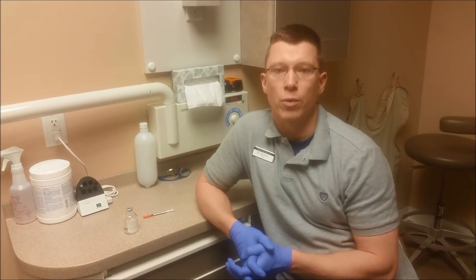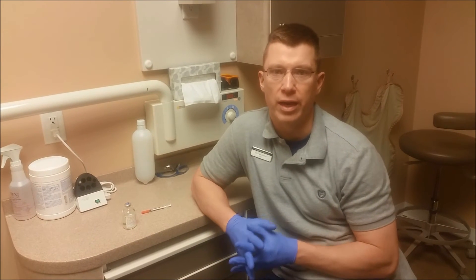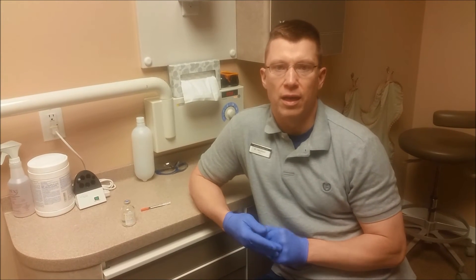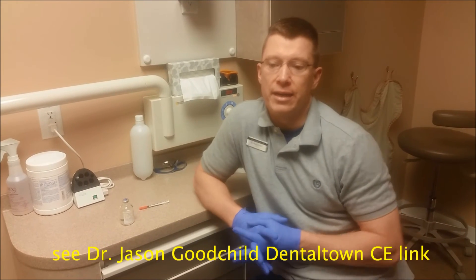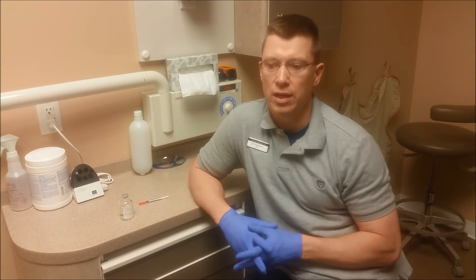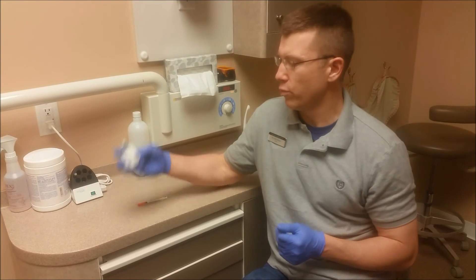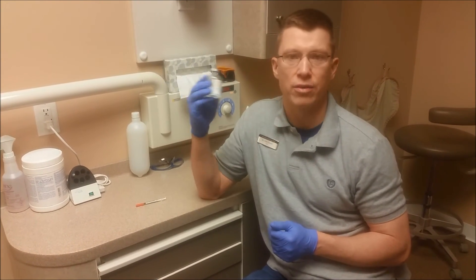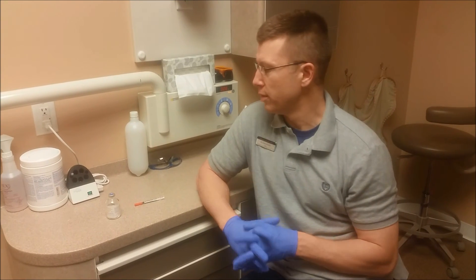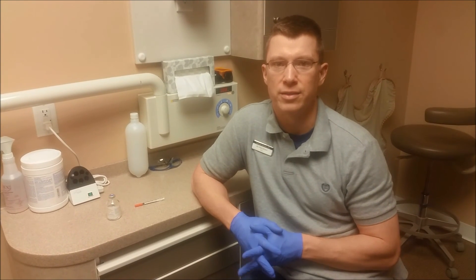One thing I was concerned about at the beginning was that you needed to do it right away, or the reversible reaction would go back to carbon dioxide and you wouldn't have the buffered anesthetic. We've been toying around with that after I saw a lecture saying that someone had done it all day long, so we gave it a try. We just load ours once in the morning for our projected morning cases, and once in the afternoon — sometimes the assistants will do it right beforehand if we're short. You don't necessarily have to do it right away. We put these in the warmer in the morning and just leave them there, and it's just fine. So be at ease — it's no big deal.